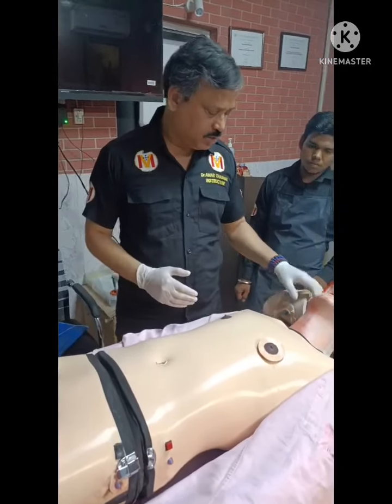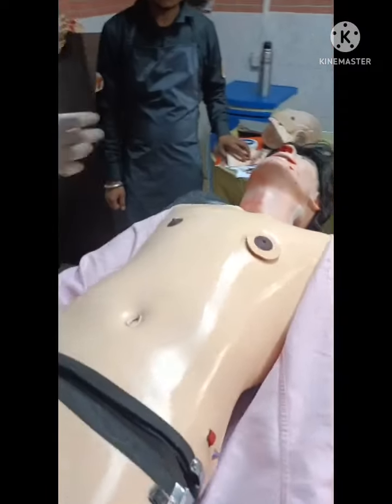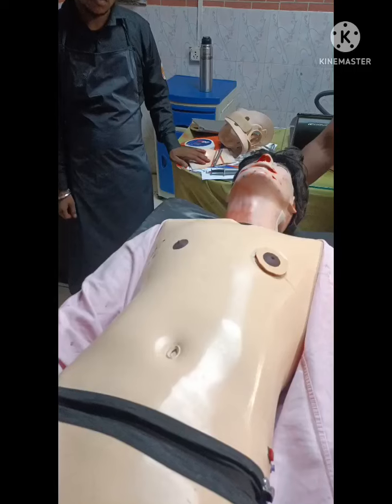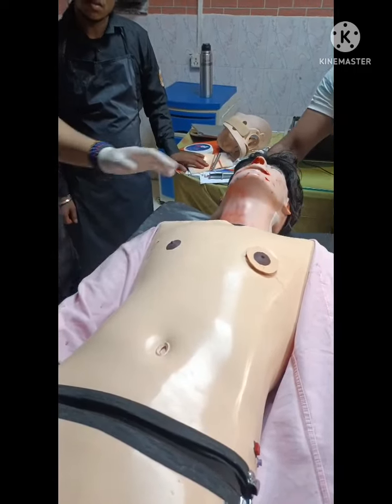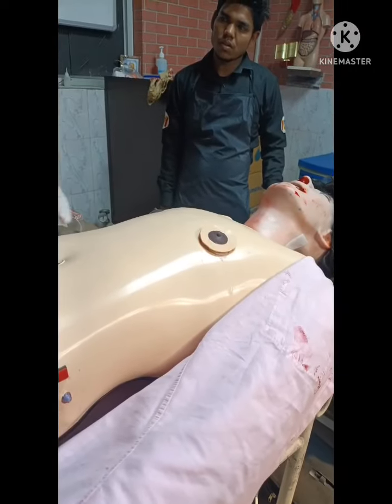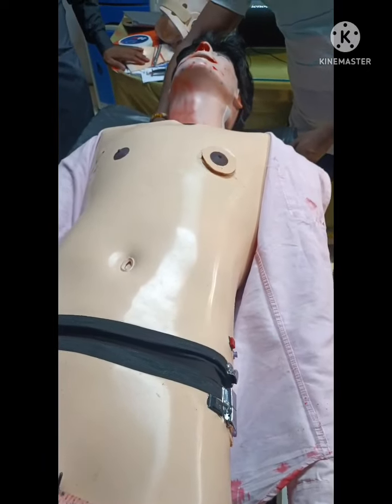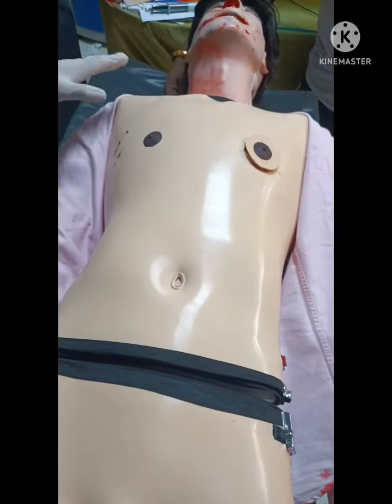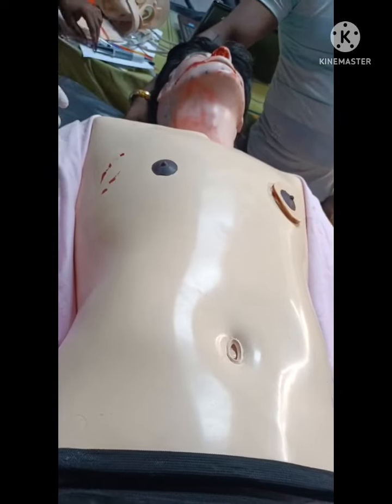Now coming to B. In B, you can see the patient is breathing. This is a very important feature this Moulaged patient has. If you want to run a scenario of pneumothorax or tension pneumothorax, you can alter his breathing pattern, and now we will see that only the left side is rising. There is a little rise on the right side because there is an abrasion on the right side, and in trauma we have to be biased.